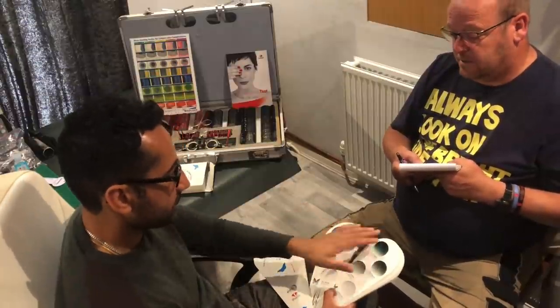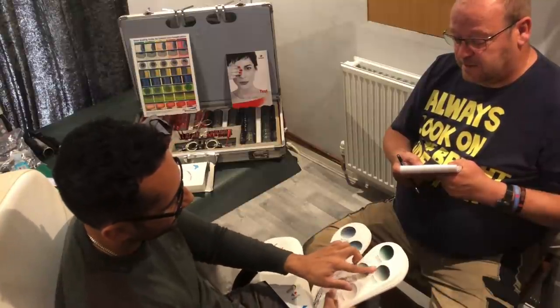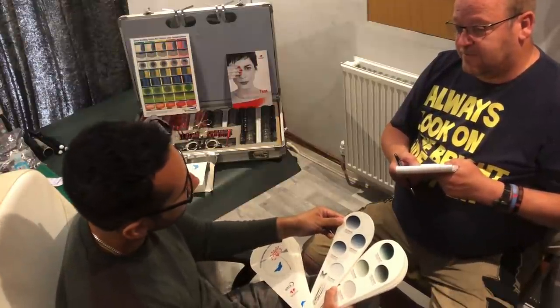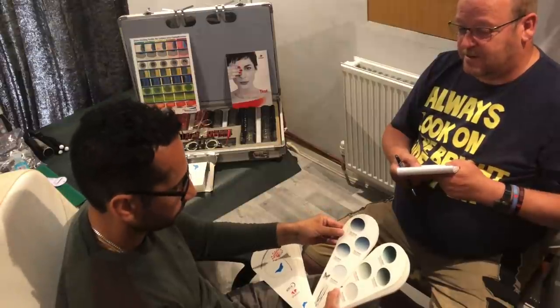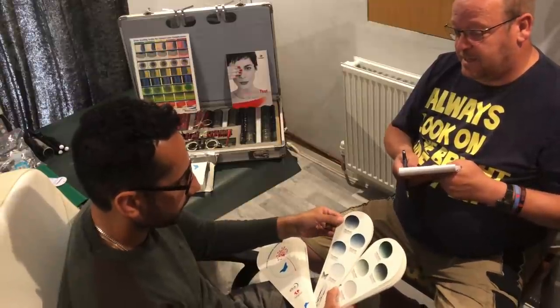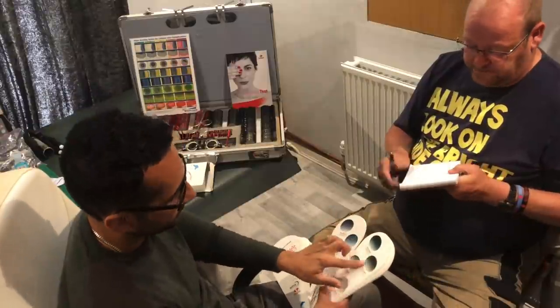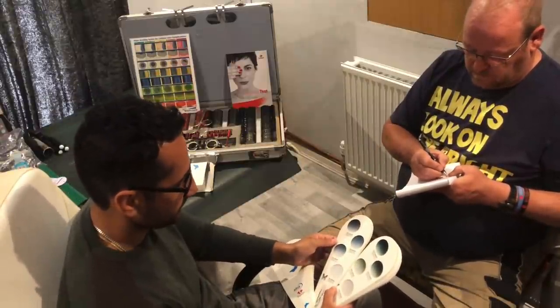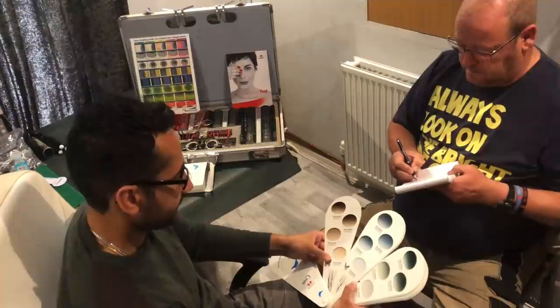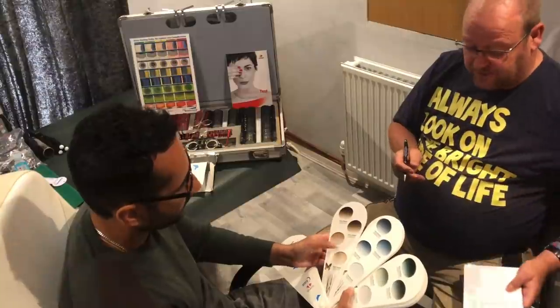I'm a little bit of a quandary now — you've shown me the green compared to the grey. Would you recommend I replace the grey graduated with the green for sunglasses? Well, the fact that you were keen to have a solid green tint for your sunglasses initially, then it might be the case. So we'll scratch the grey, please. The green graduated, same absorption factor, please. The brown is pretty, the green is something different, the grey is very ubiquitous.